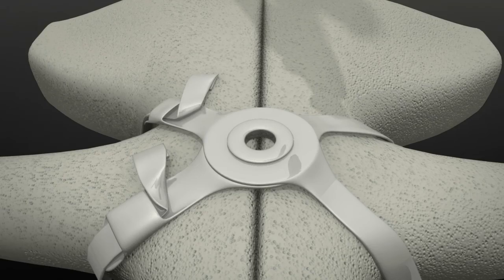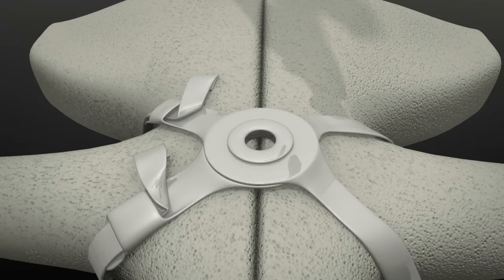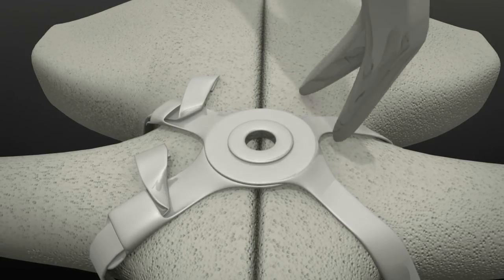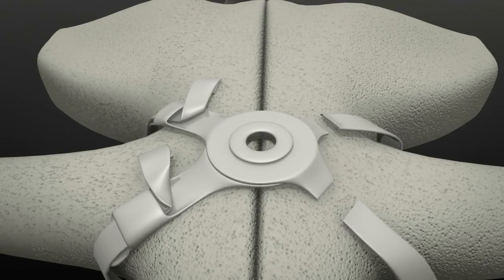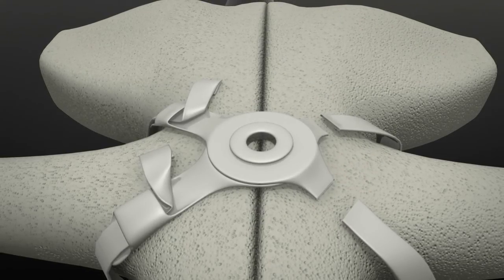To remove the Figure 8 Sternal Closure device, you simply apply wire cutters vertically and straight down on the strap at the point where it connects at the hub. This is on the opposite side of the hub from the security box.